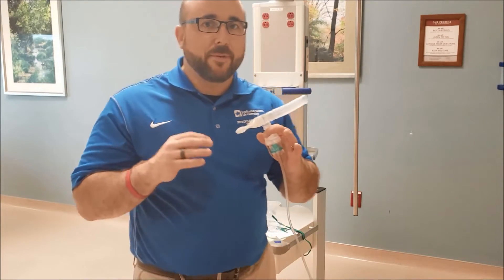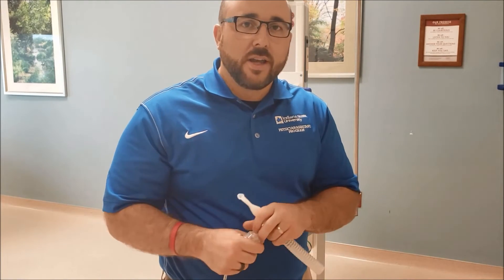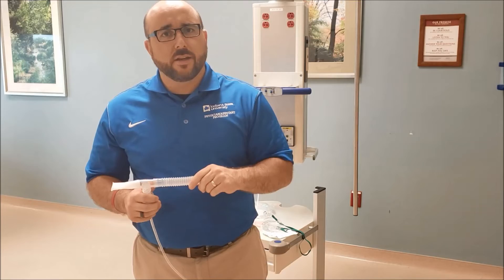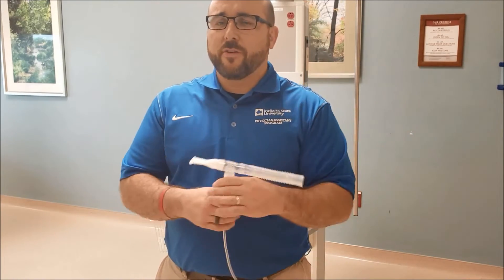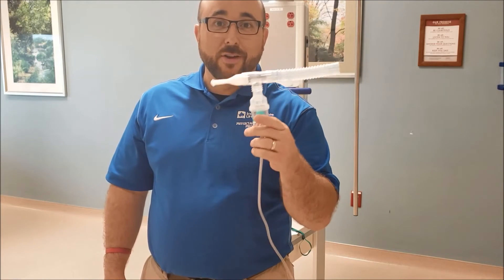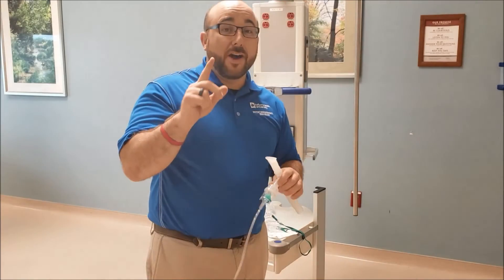That's absolutely normal — it happens with this type of medication. Now we're going to move to the next nebulizer, one that gives a higher dosage in a shorter amount of time. It's similar to a breath-actuated nebulizer. In this case it's a tower nebulizer, and I'll show you a little bit about it. We use this a lot in the ER or for somebody we need to turn around quickly. The standard nebulizer we just covered is what you'd get on the floor or at home. These are mass manufactured, so they can be defective — just a little thing to watch out for.